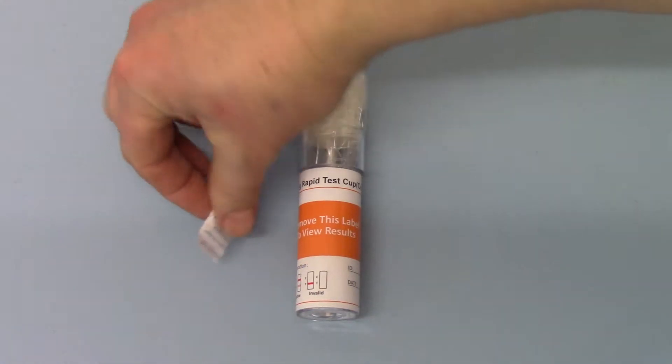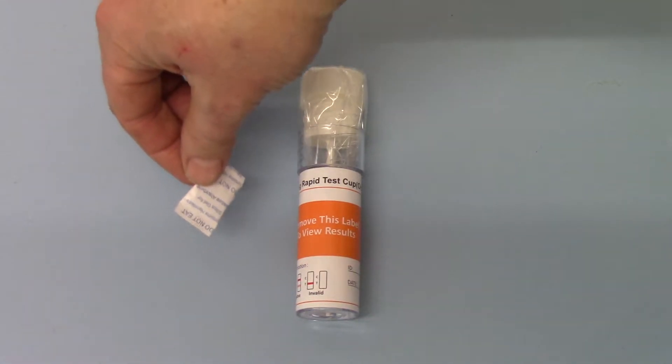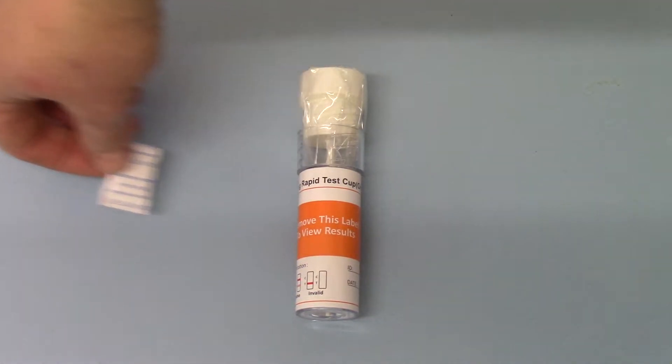You get the desiccant, which is the pouch to keep the membranes completely dry while it's being delivered to you.